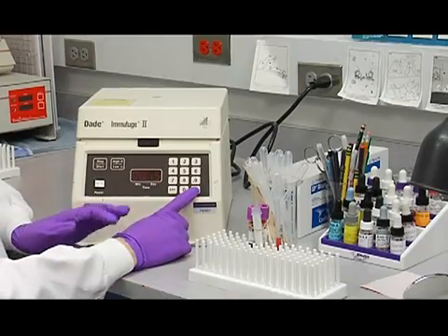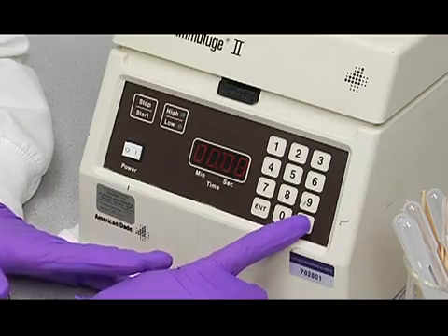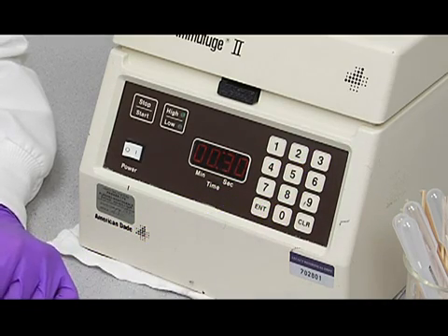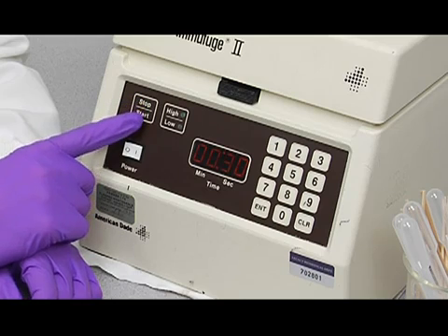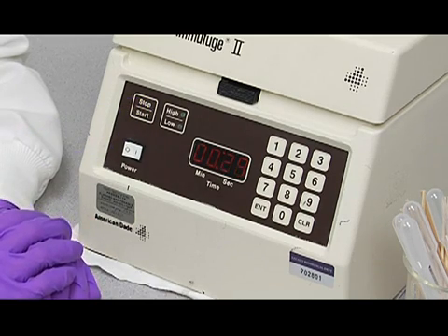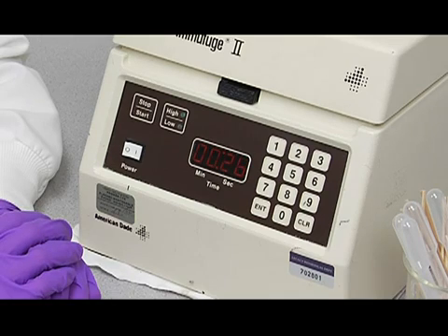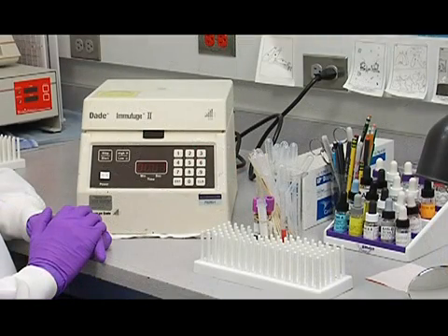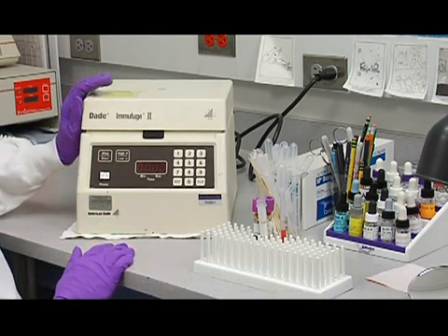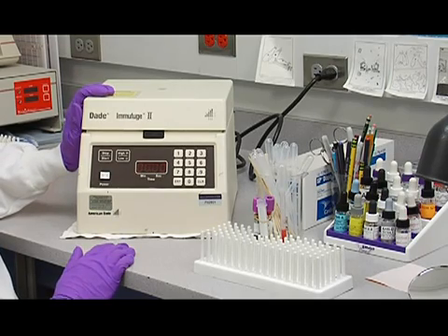We're going to spin them down for 30 seconds. So you'll push clear, 30, and enter. And then you'll press the start button right here. The centrifuge will make a soft beep when it stops and it's safe to open the lid.